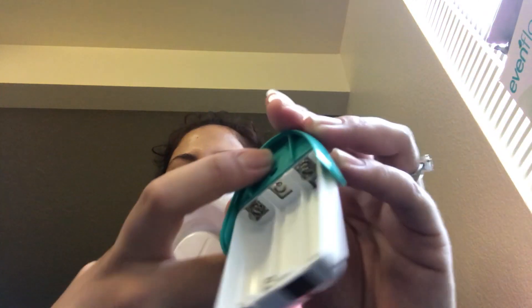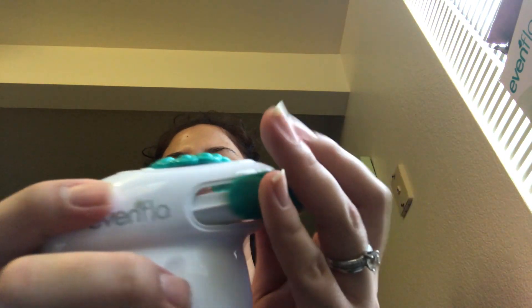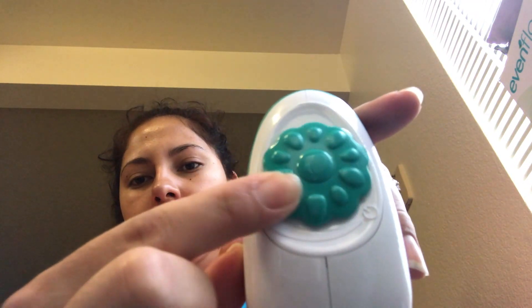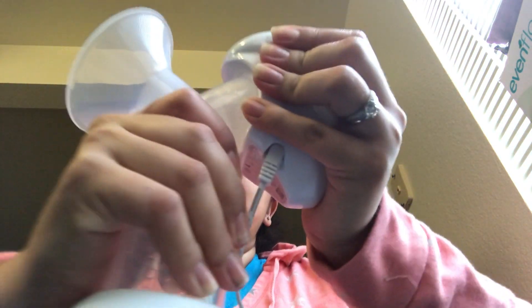This here is for batteries as well, and it had an extra little thing for where the milk flow goes, just in case. Off, all the way on, and off. And pop it in. There you go.